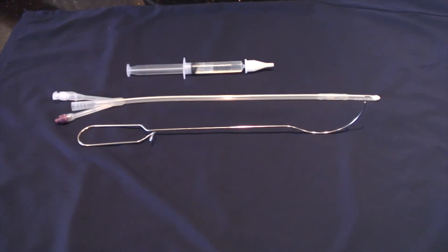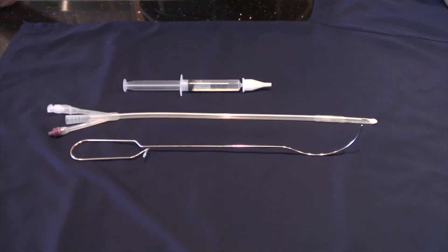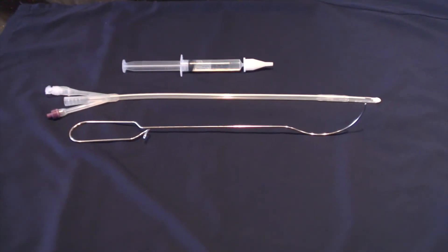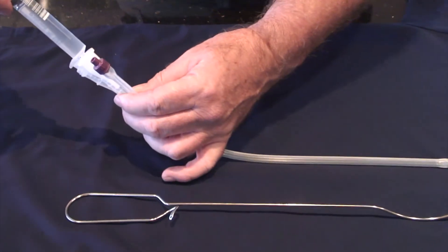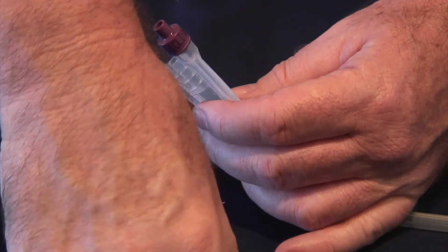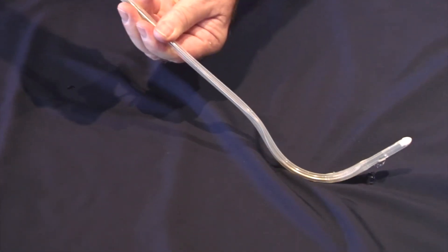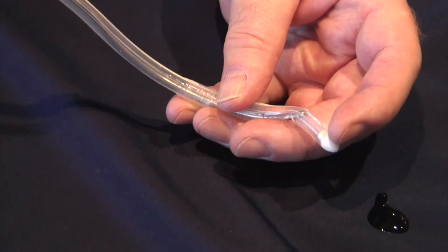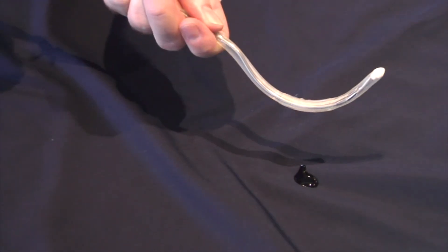This is a catheter introducer. It is designed to stiffen the catheter to allow it to be guided into the urethra in the male patient. It is usually used after such procedures as transurethral resection of the prostate. It should not be used by inexperienced operators. Prior to inserting the introducer it is necessary to lubricate the drainage channel of the catheter with lignocaine jelly to enable it to be easily introduced. Care must be taken to ensure that the introducer does not slip out through one of the drainage holes, and it should be clipped on at the handle.